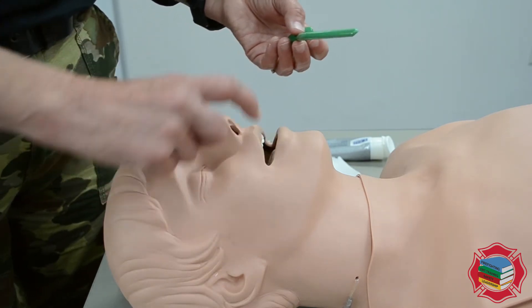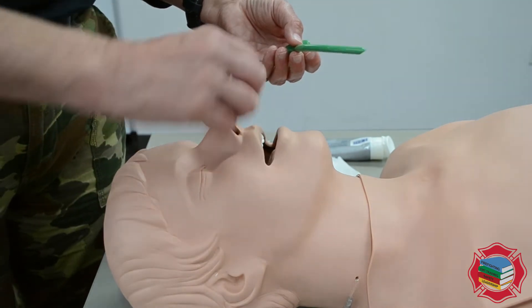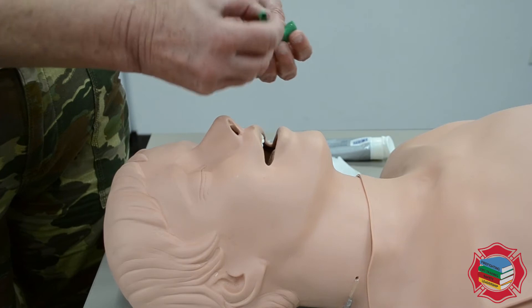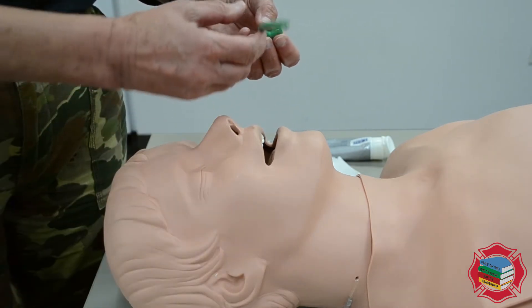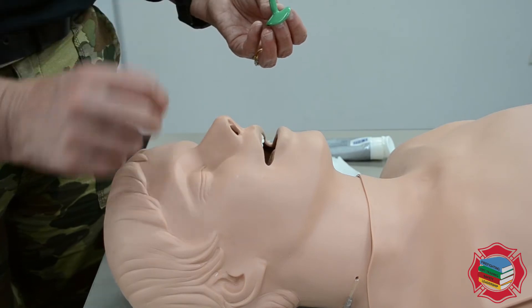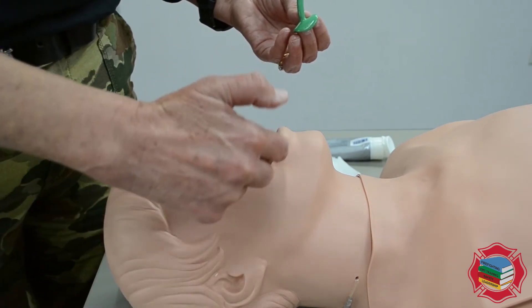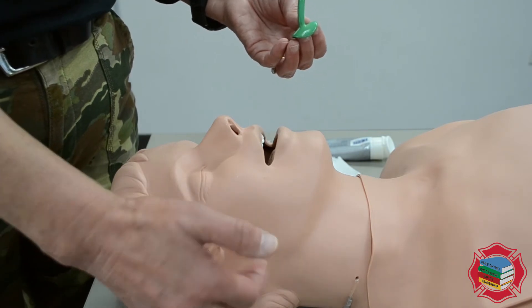There are some contraindications to this airway — reasons not to use it. One of those contraindications would be trauma across the midface, known as midface trauma. It could also be a basilar skull fracture, which is a fracture at the base of the skull. The clinical indicators of a basilar skull fracture would be clear fluid leaking from the ears or the nose.